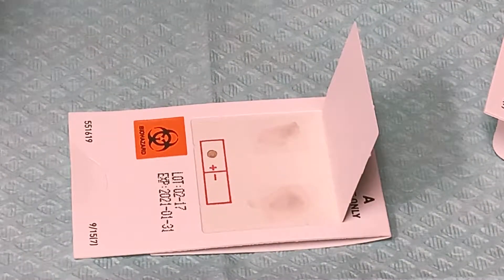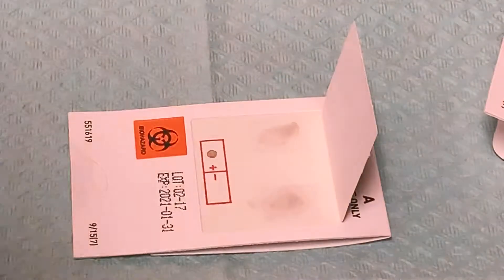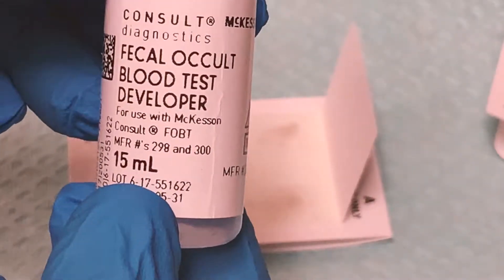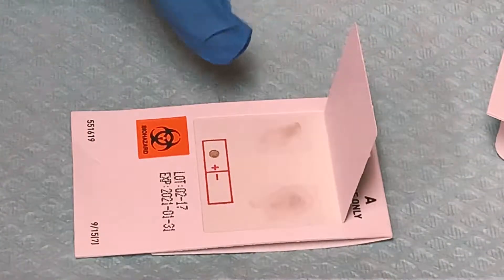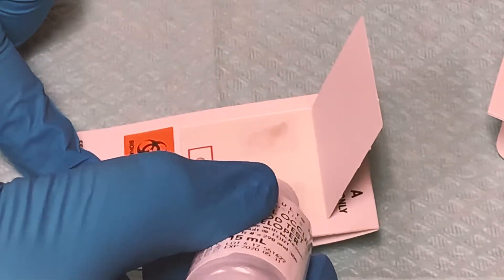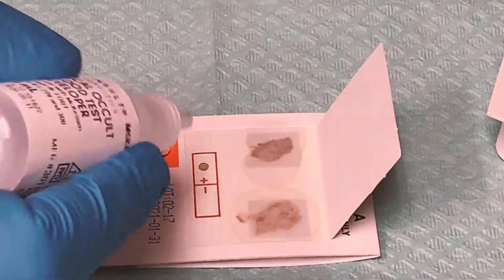To develop this test, we first place two drops of the developer — this is the developer that comes in the box with the cards, the fecal occult blood test developer. We place two drops of this developer on each of the squares: one drop, two drops on the A square, and one, two drops on the B square.